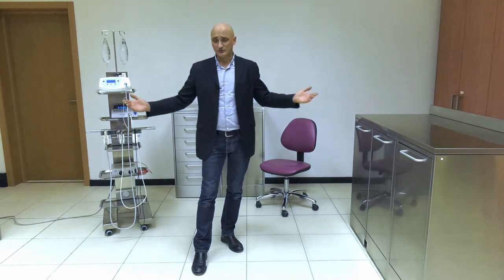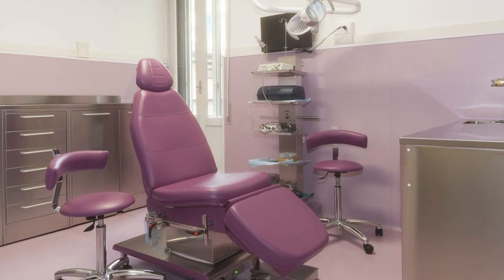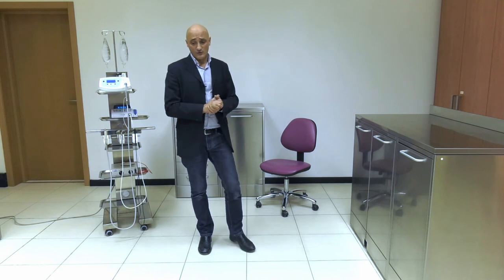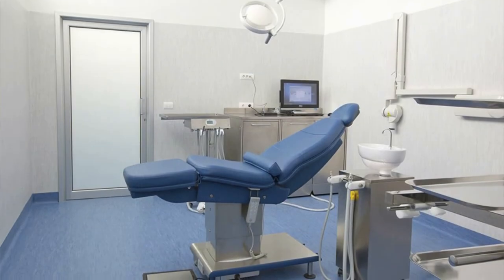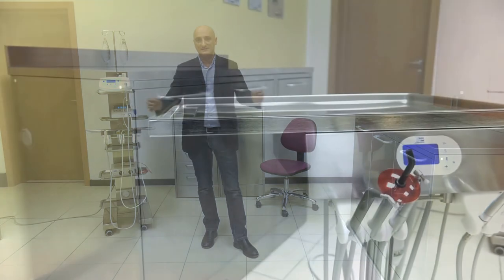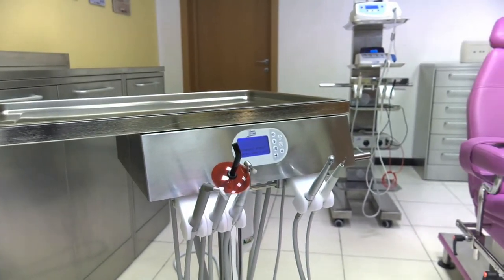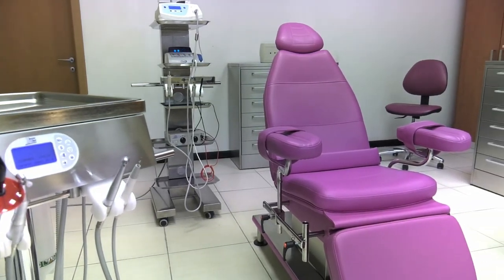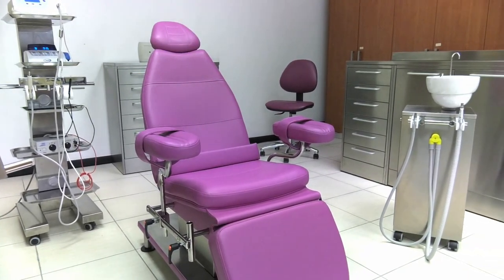As you can see from our instruction manual, we also provide for the option of purchasing our whole surgery line without cabinets. Our internal experts will make a free project for you to advise you about the best way to set up your surgical room. By doing so, you'll have a chance to optimize your work and ensure the best professional performance.